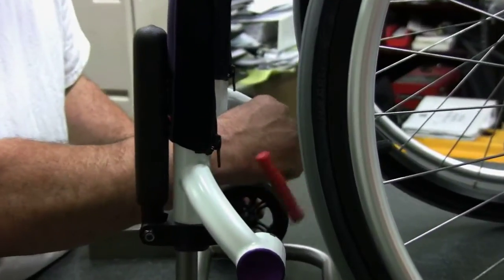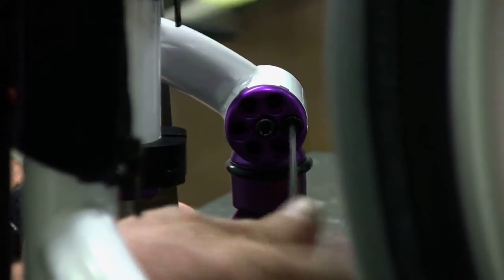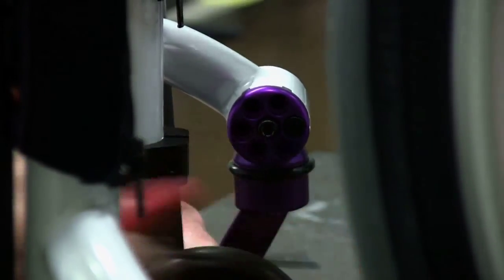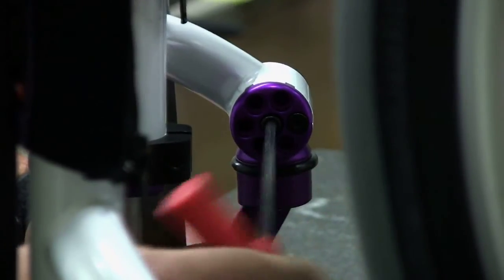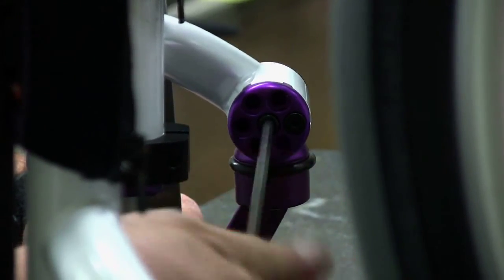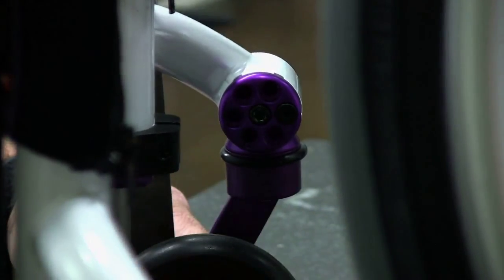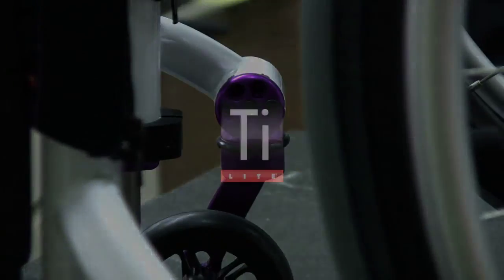Step 8: Securely tighten the center screw. Step 9: Securely tighten the outer screw. Thank you.